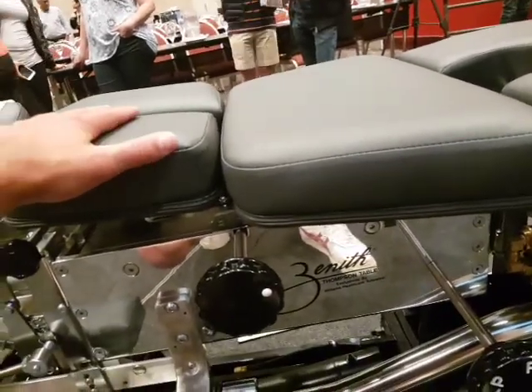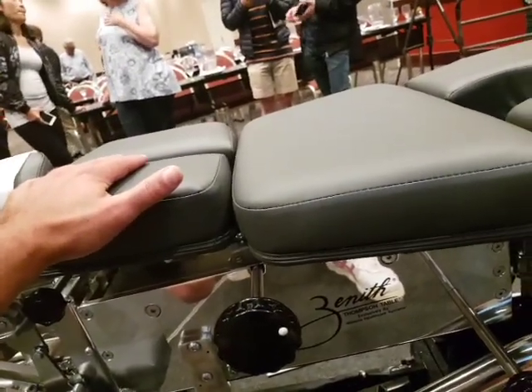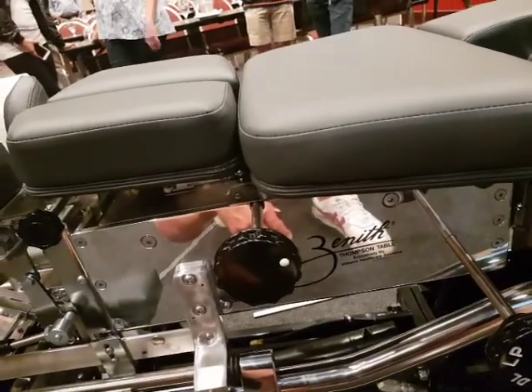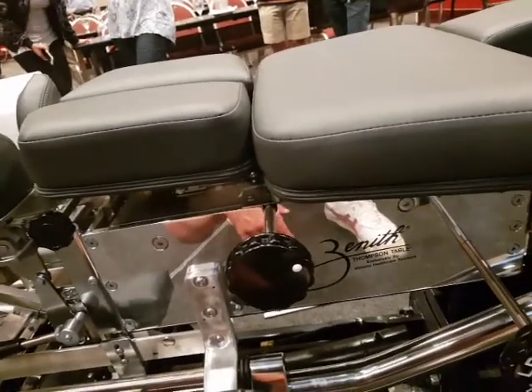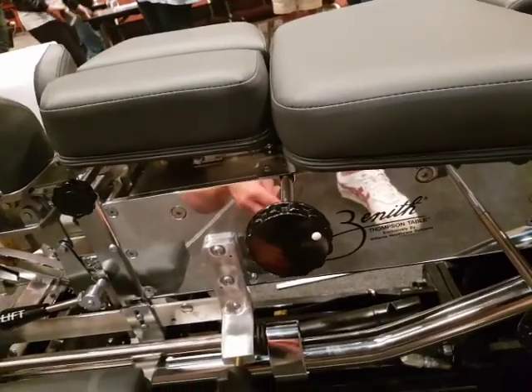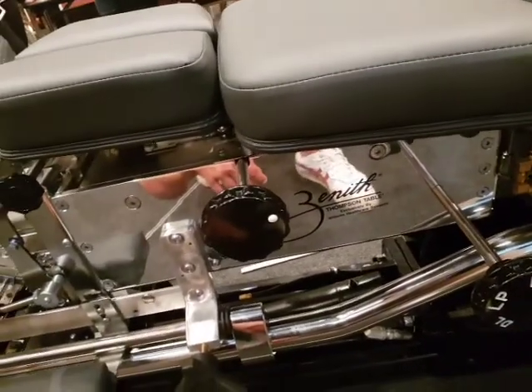For servicing, just keep the cushions clean using upholstery cleaner from Repco, cleaning them periodically. The table has a five-year parts-only warranty — it doesn't include servicing, but it covers any parts you need for the first three years, then it scales to 75% and then 50% of the value of the parts after that.